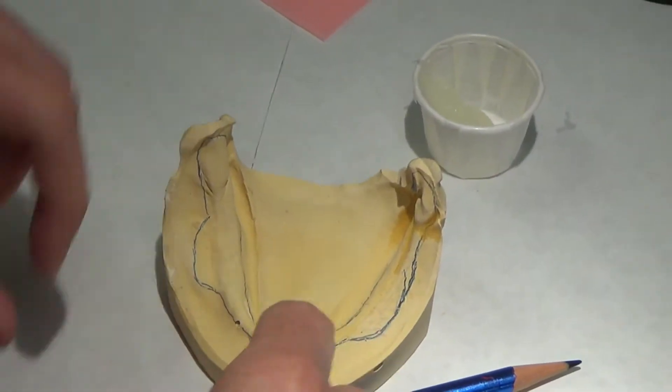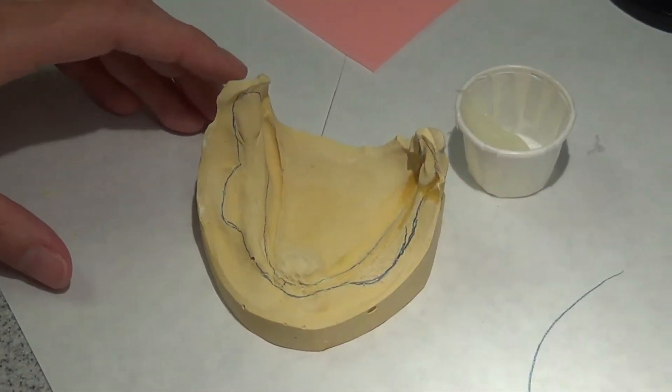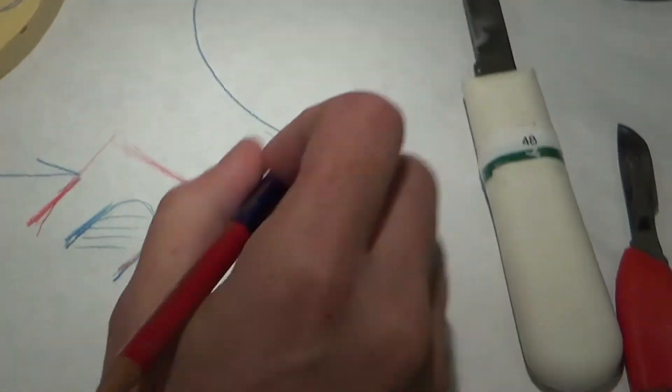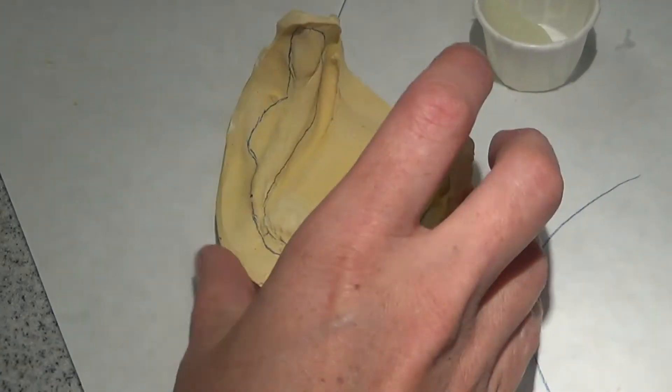Do you see how skinny this is going to be? So if it's only 2 millimeters wide and 2 millimeters thick, this thing can break very easily, especially because it's going to be super tall in the back. So I'm going to end up with something that looks like this, and it's super thin here. I don't want that to break. So I'm going to be mindful of that as I go along.